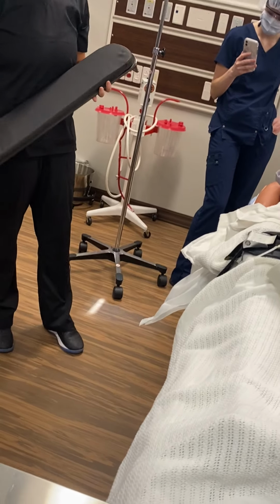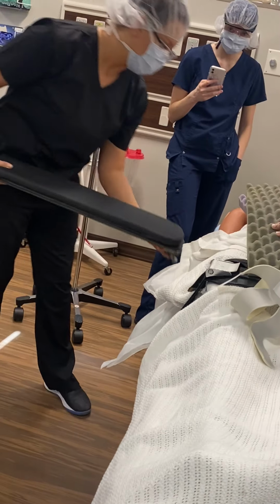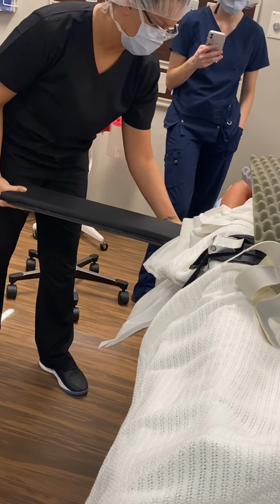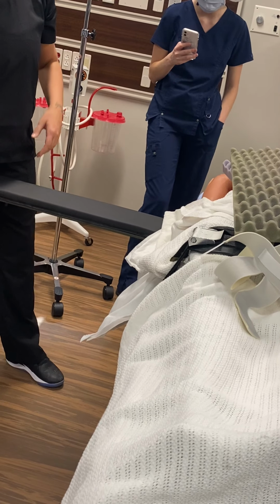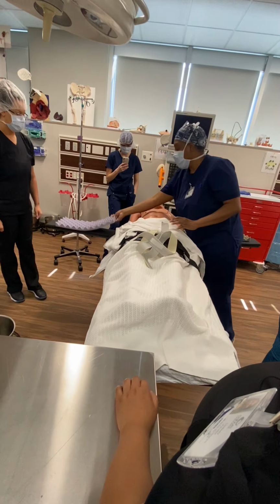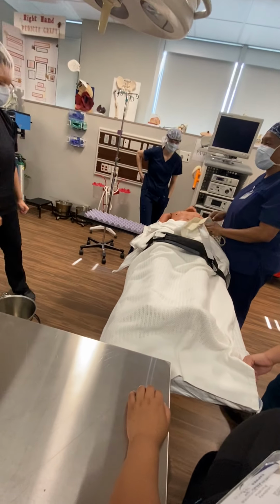So you got practice, cool. Now put it back on. If the nurse asks you for help, go at an angle. So you take it off, you put on sterile, very good. You've already practiced this, okay? Absolutely, and then you can use that on everybody else, because sometimes they give them that happy drug, right? So let's practice on the board.